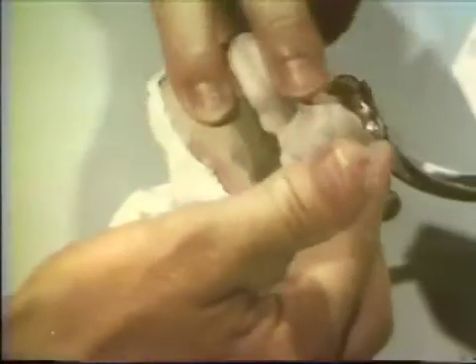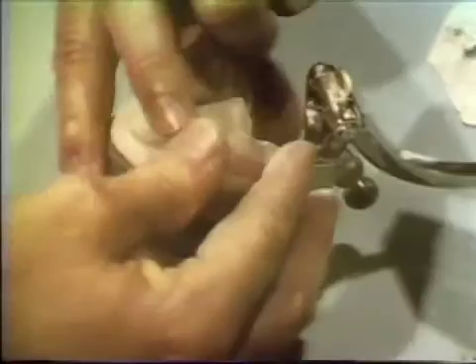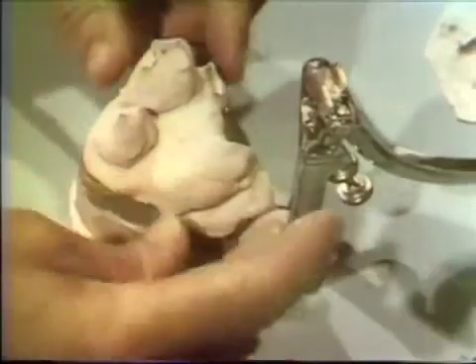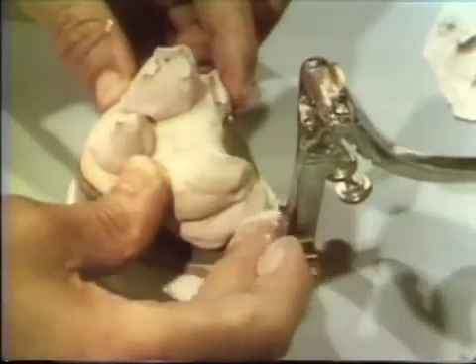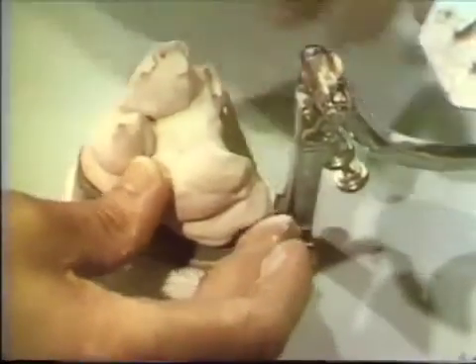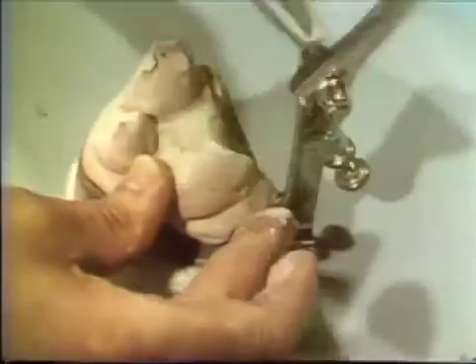All excursive movements have been generated into the wax pattern. Therefore, nothing more than a hinge type of articulator mounting is necessary for setting the replacement teeth.